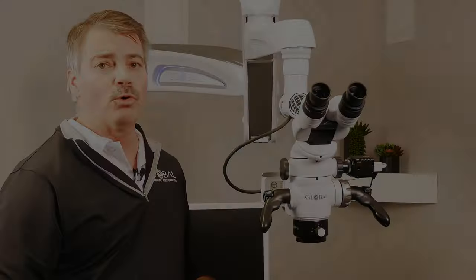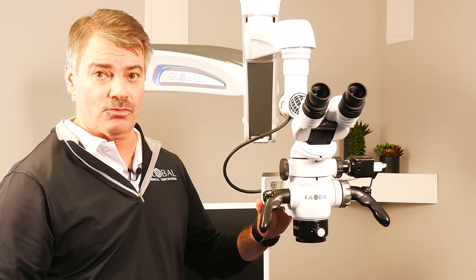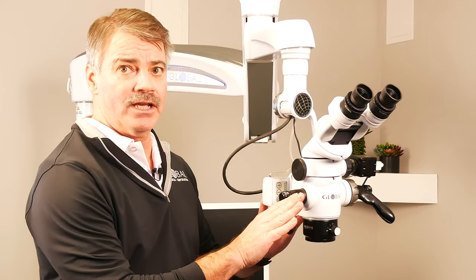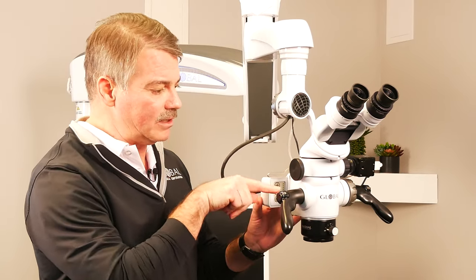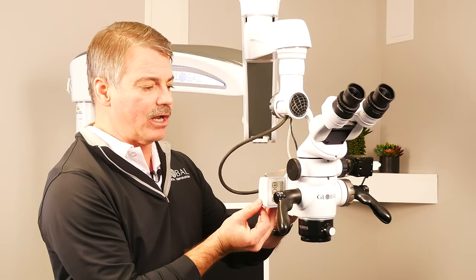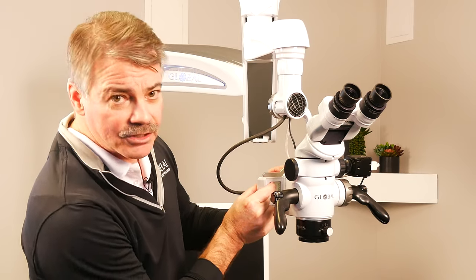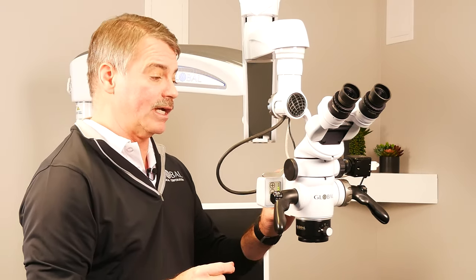A very important feature of the microscope itself is the LED light source. The Global A-Series microscope has a direct-to-port light source, meaning that the LED goes directly in and the light is housed in this housing right here. There are 11 different gradients of brightness control built into the light source.